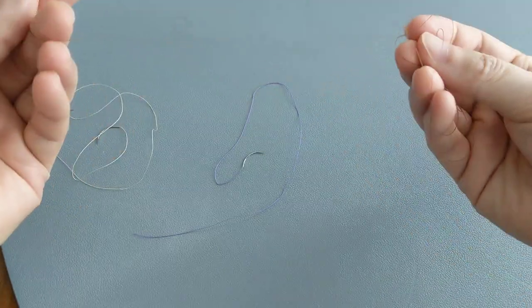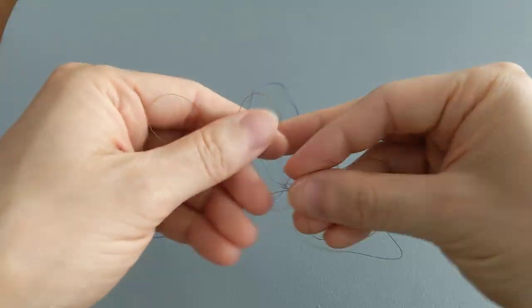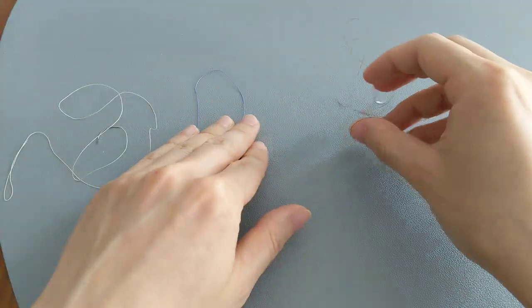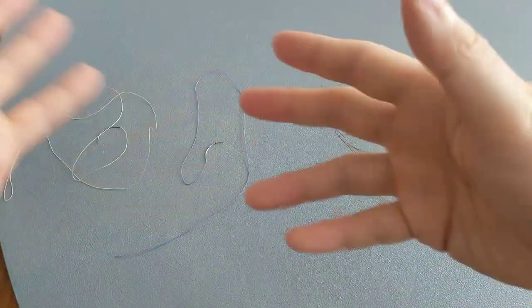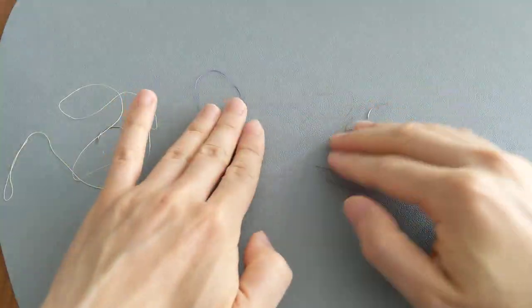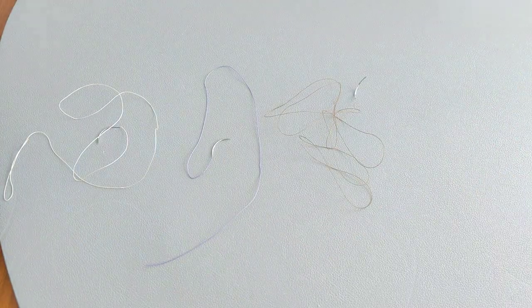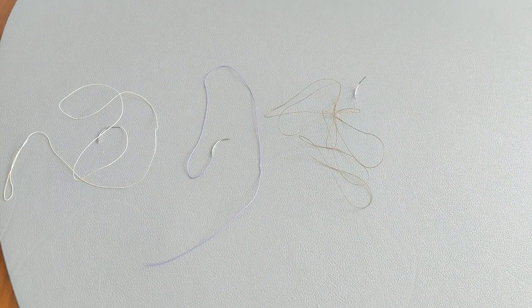You really won't be able to tell the difference between which material is which based on how they look. But yeah, that's it for what dissolvable sutures look like.